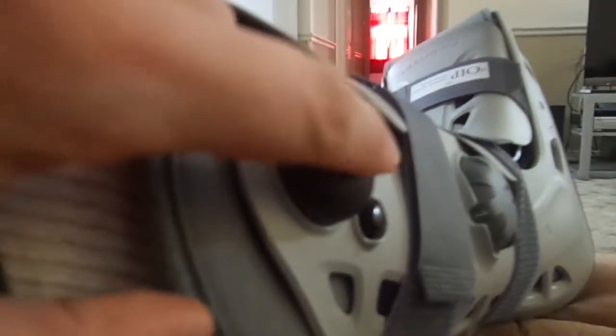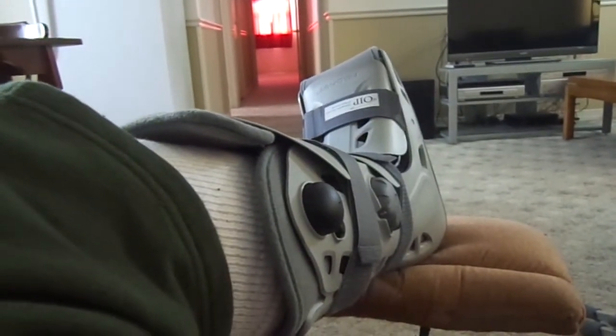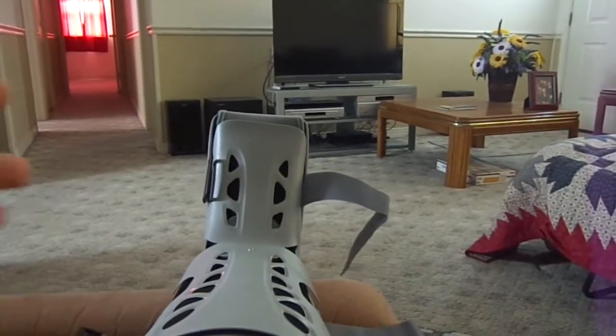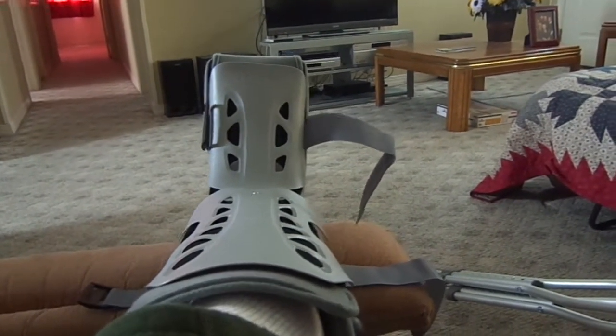You can see it's about the whole length of my foreleg. It's got a pretty neat feature — it's got like a little nub that's like an air pump, and then you got a knob right here. I'm going to take off the boot and show it to you. If you didn't see the first video, I basically fell on a patch of ice about two weeks ago and broke my ankle in two places, which resulted in surgery — officially seven screws and a plate to hold it all in. They removed like 26 stitches from two incisions.